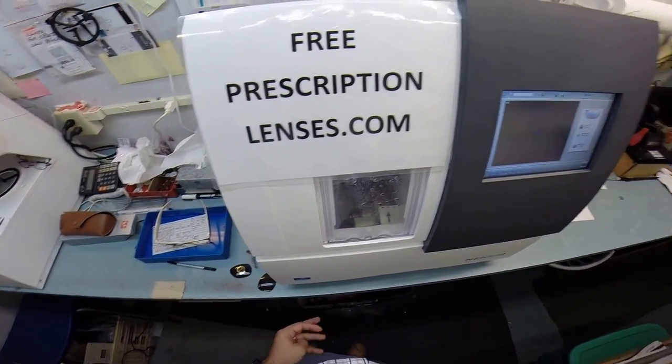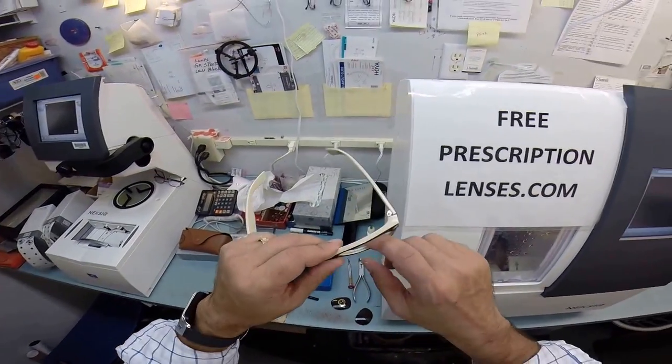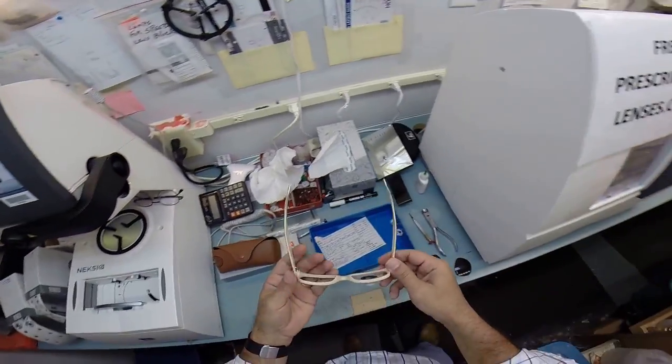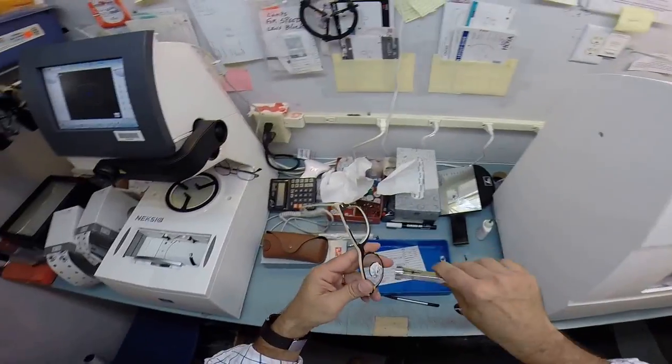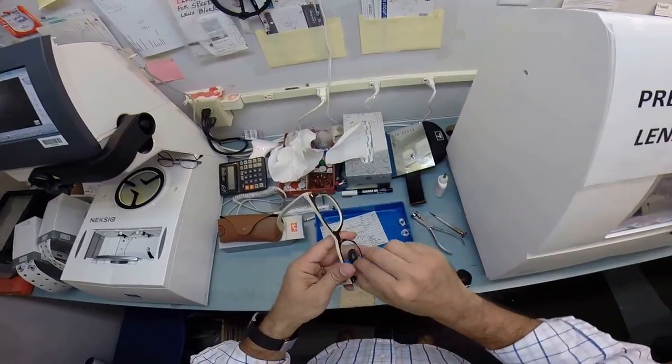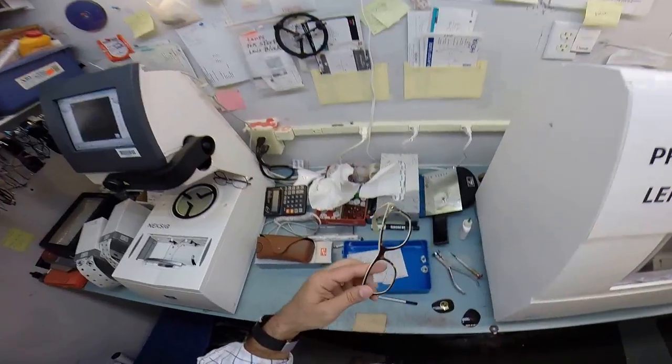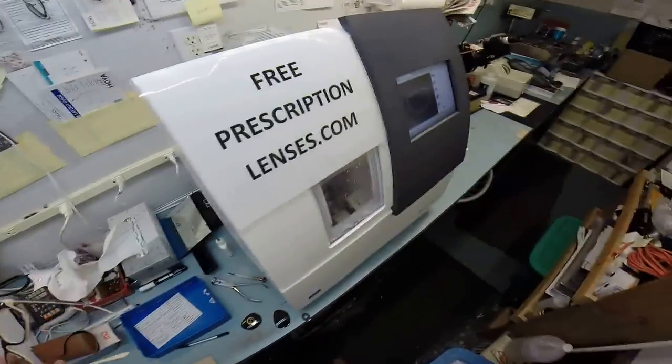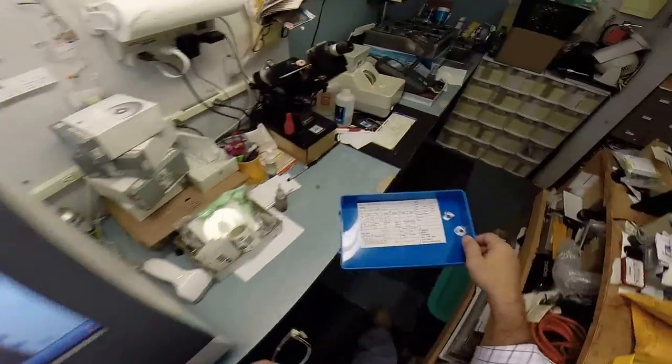But I'd always have to take it down some more for the larger eye size because this has a deeper bevel. But in the last six years, technology has come a long way and they've fixed that up really nice. So let me take this block off. It is no longer needed. Pull that sticker off. It is no longer needed to dry your lens off. And now we'll go ahead and continue working on the right lens while your left lens begins cutting.